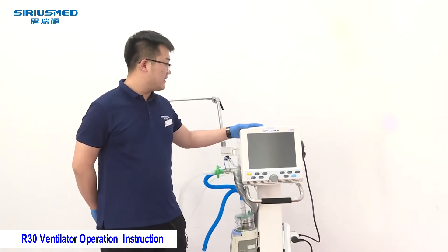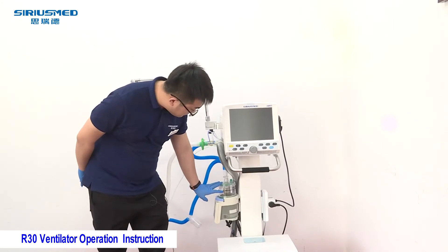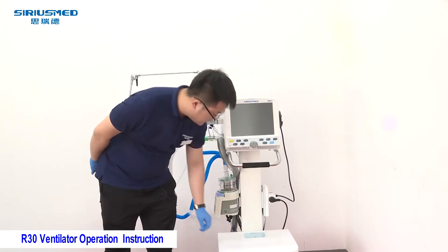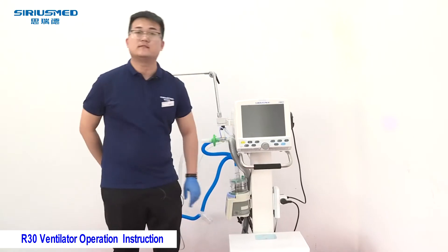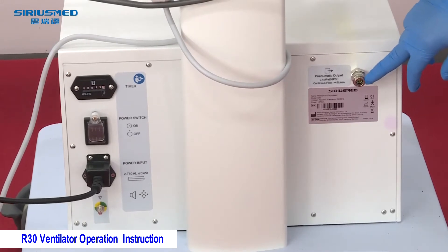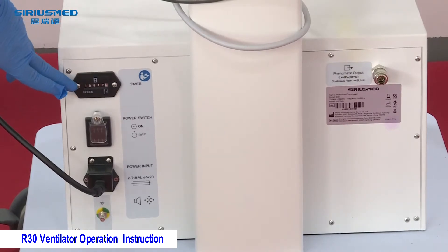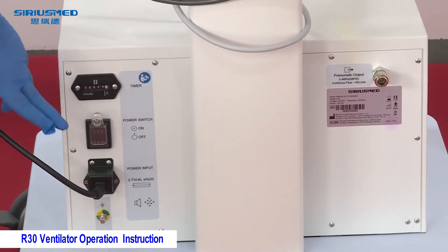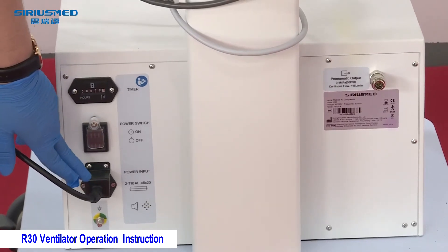We will introduce each part of the ventilator. This one is the main unit of the ventilator. This one is the humidifier, the trolley, and the air compressor. This one is the pressure gauge of the air compressor, and this one is the outlet for the air compressor. This one is the timer for the air compressor, this one is the switch, and this one is the power cable.